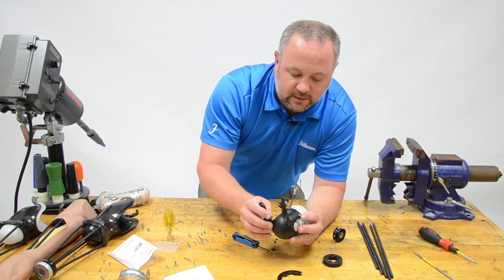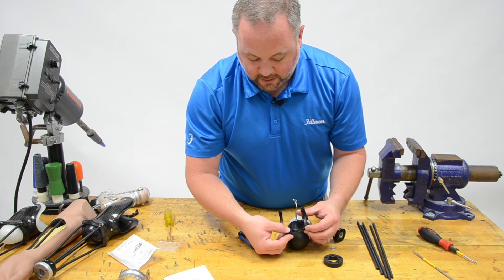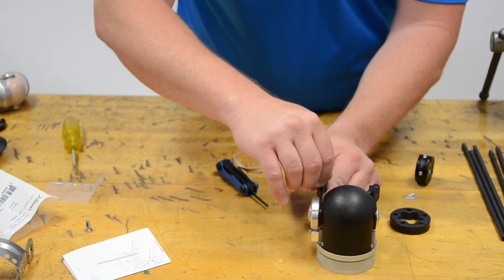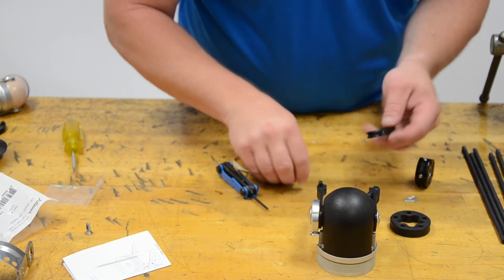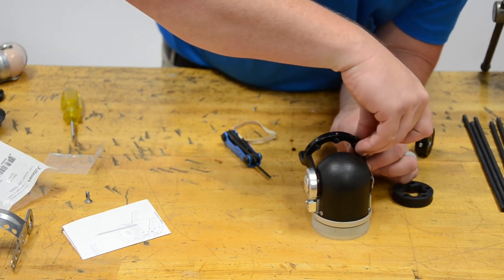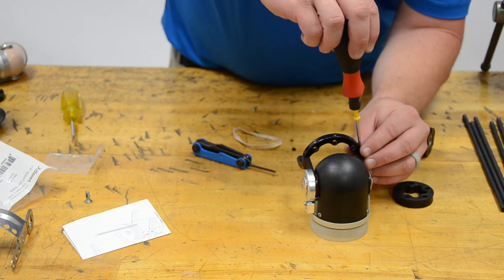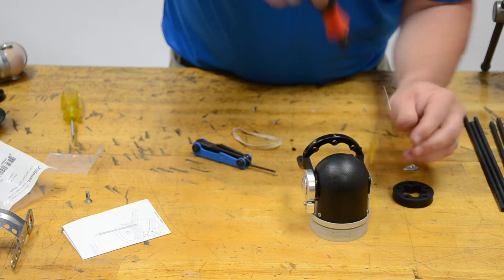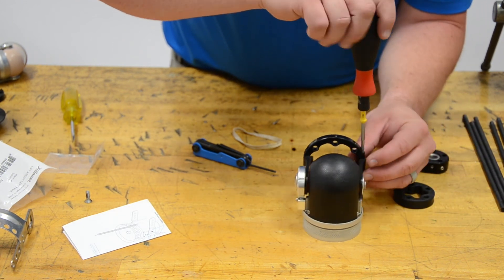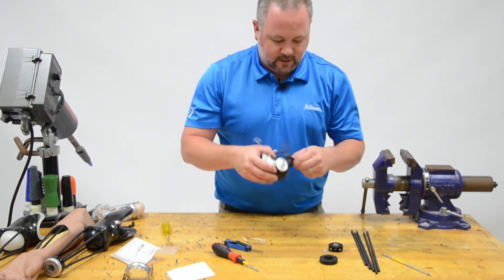Once it's weighted, that should move pretty cleanly. Now for the connector — since it's an E400 elbow, I'll choose the proper size connector. These connectors are installed by placing small socket head screws in the bottom. Place one in, slide the connector in place, then place the other set screw in. Use a 7/64ths wrench to tighten these in place. Now the saddle is installed and moving freely.